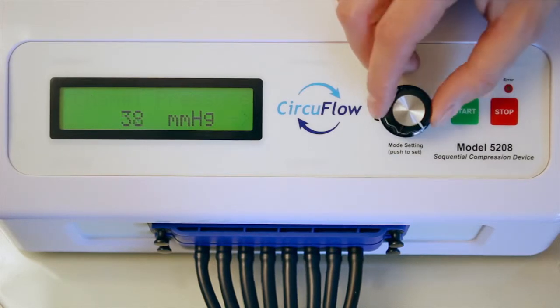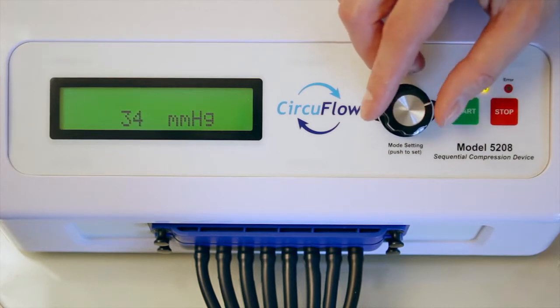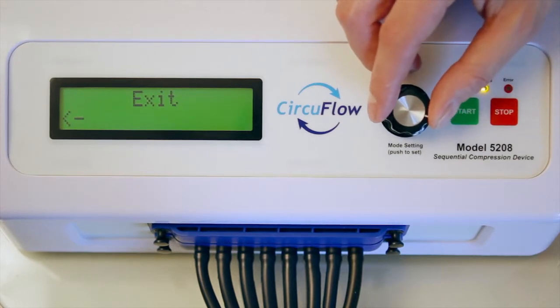Repeat until you have reached chamber eight. Once completed, the screen will read exit. Push the knob to confirm.